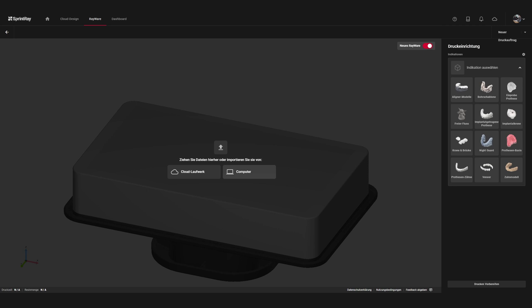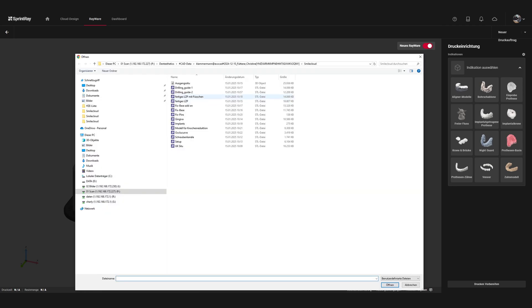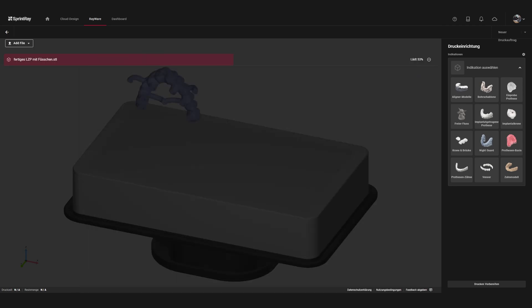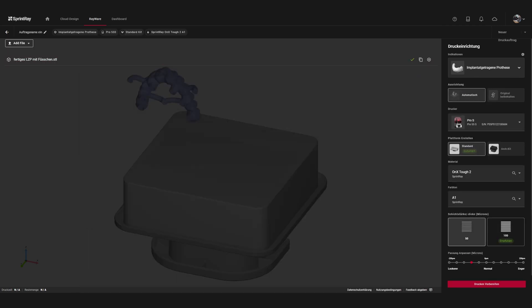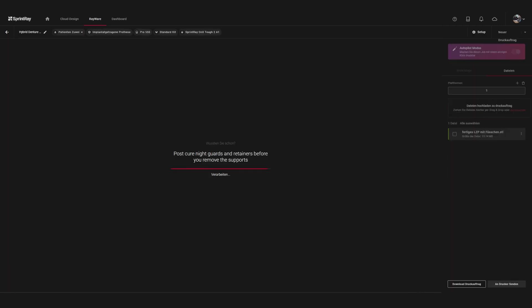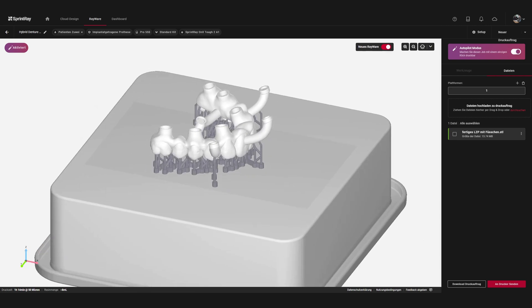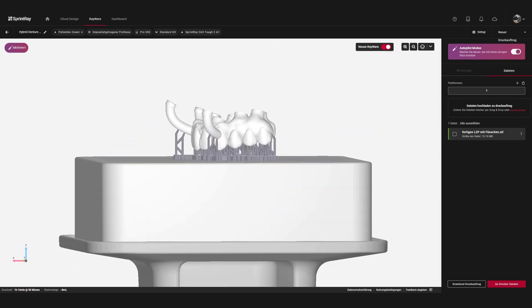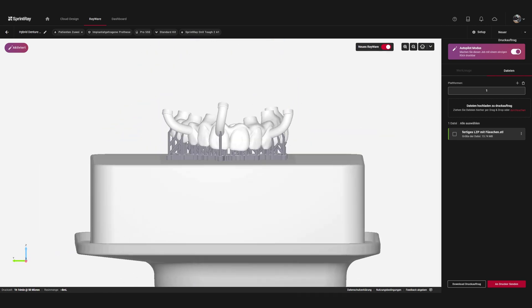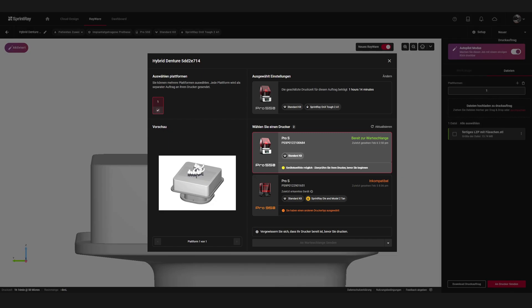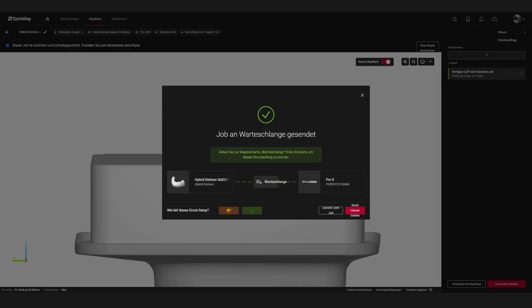There is an interesting shortcut to get a 3D print straight out of the printer without any lab software. Sprintray users can upload their files directly to the Rayware website and an AI software creates the printable design. By downloading it to the printer, you can start the printing process right away — how cool is that?